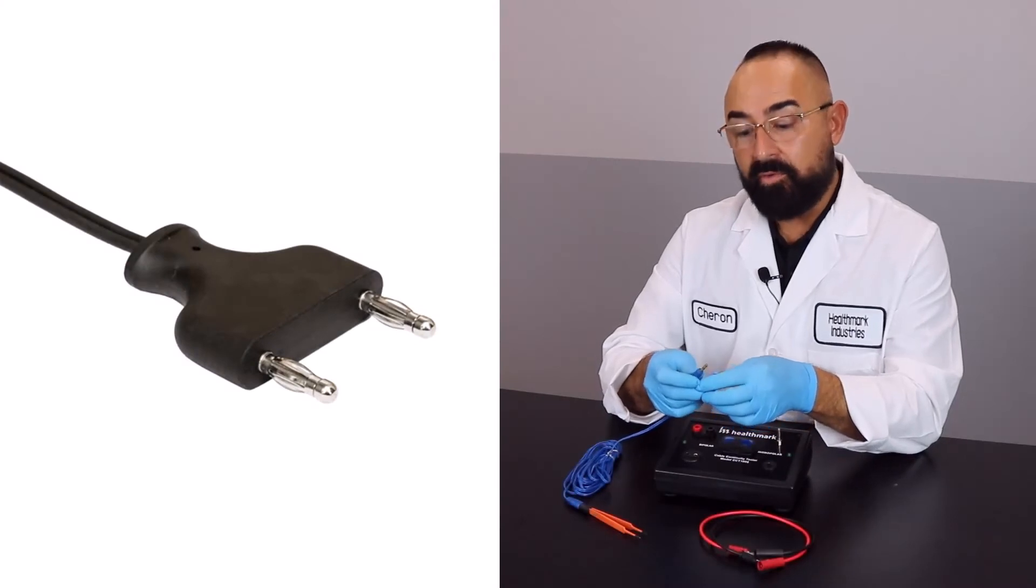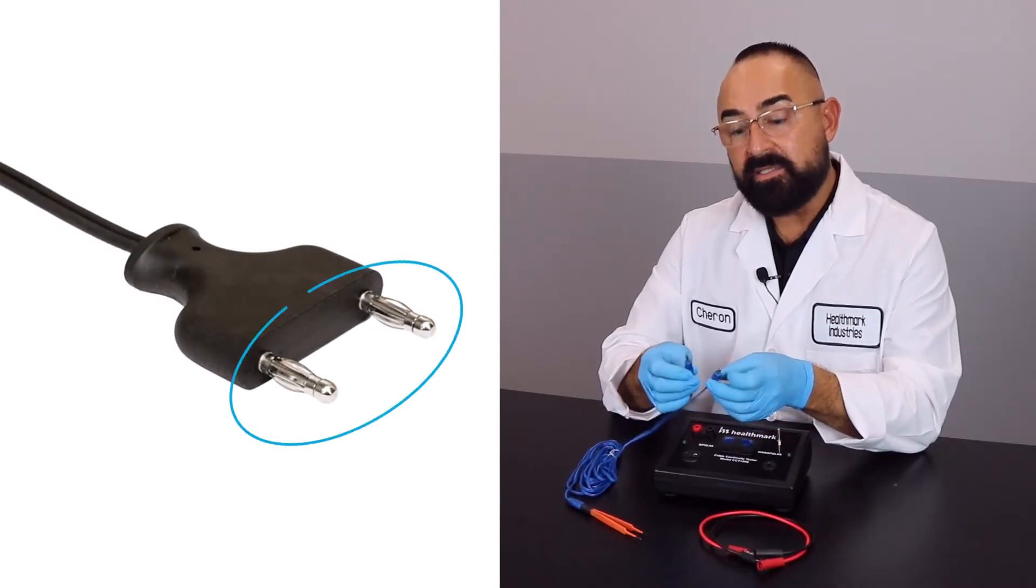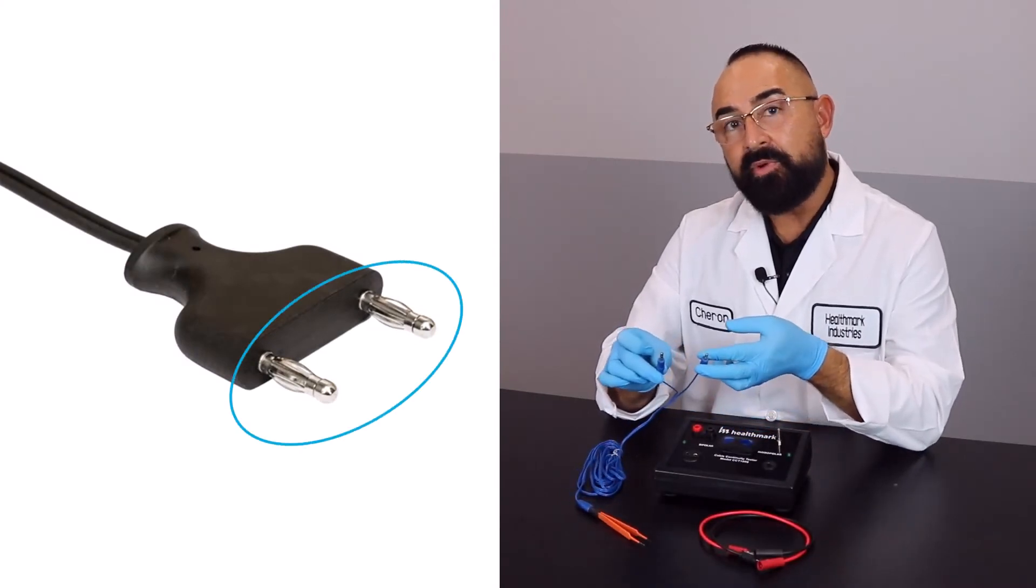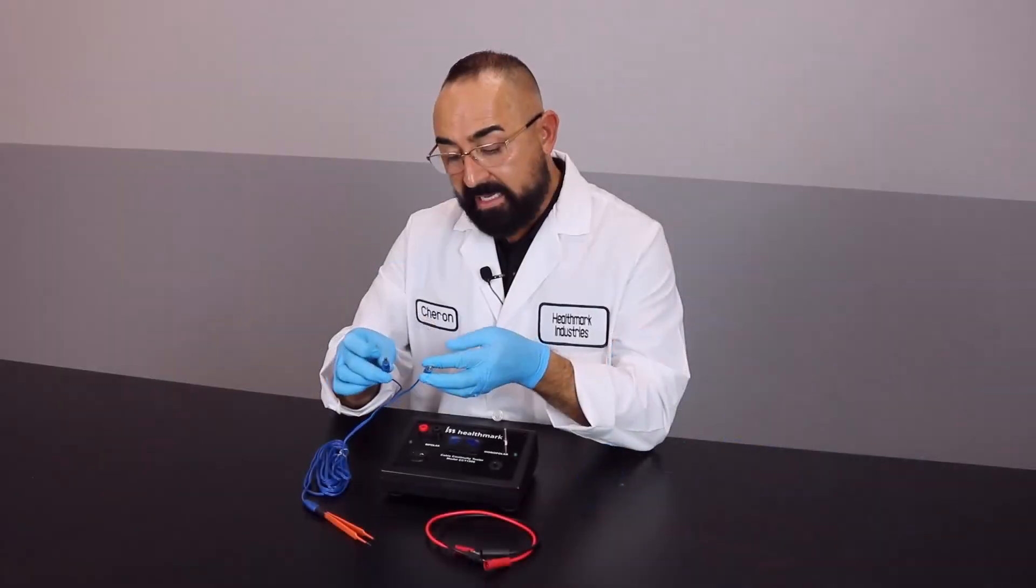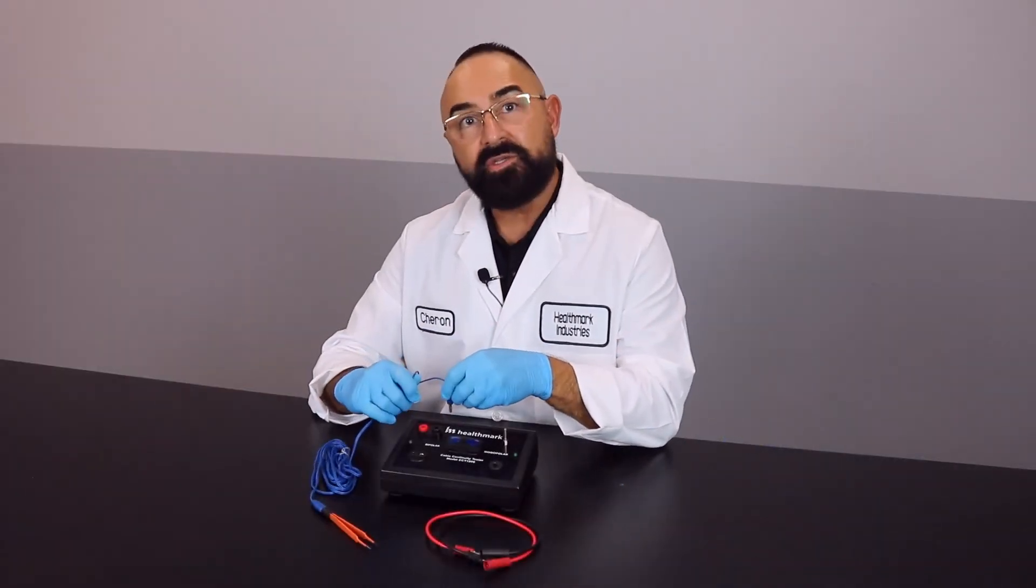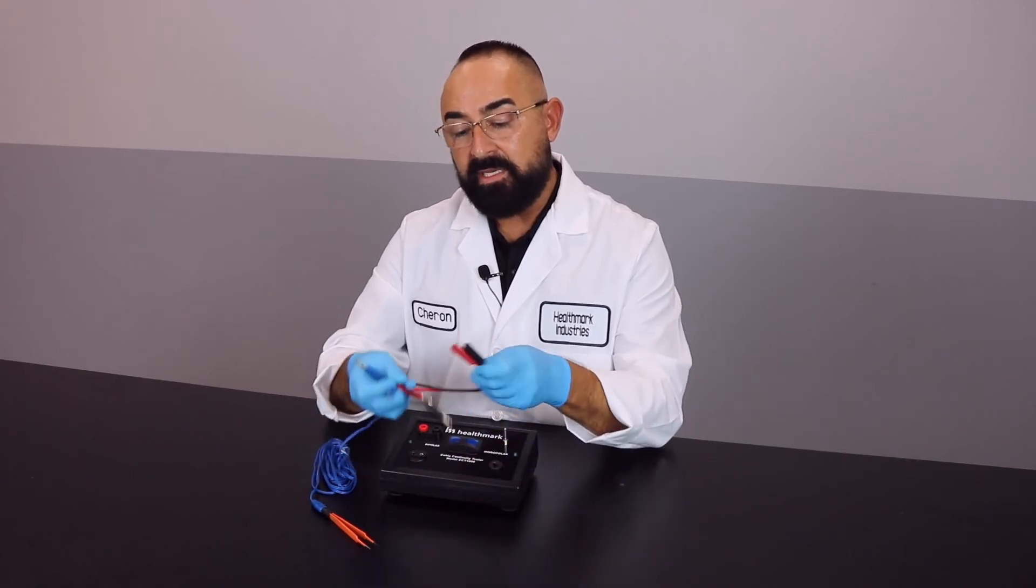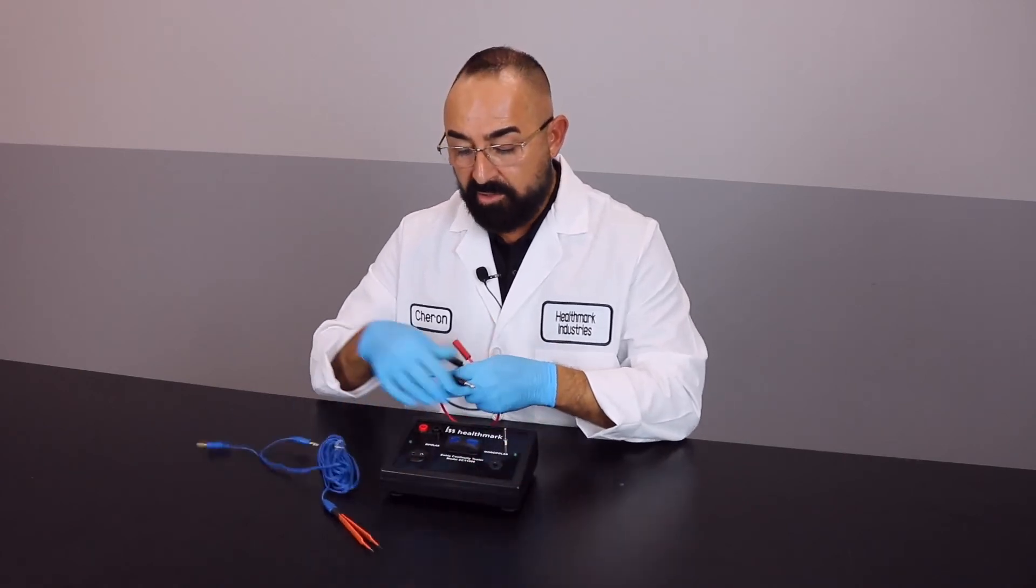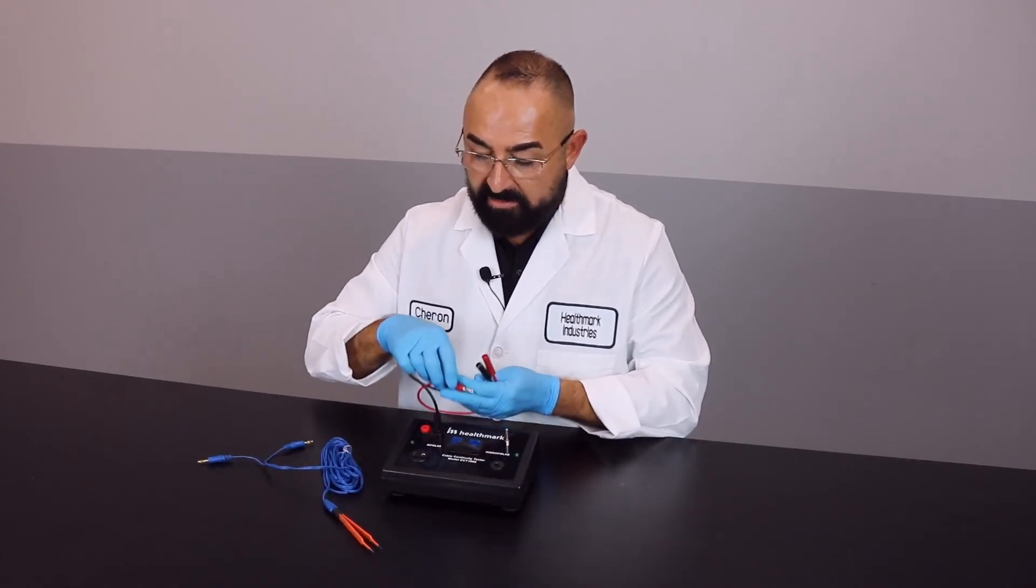Sometimes you'll run into bipolar cords that actually have a fixed base where the posts are actually separated further apart. In that case, it won't be able to fit into the unit directly. There are adapters that can be purchased separately where you can hook up black to black, red to red.